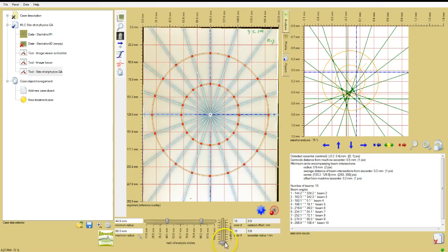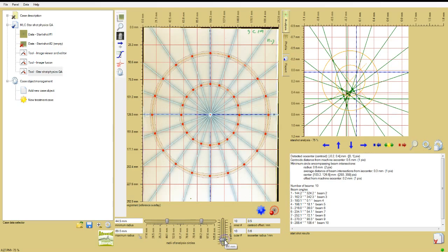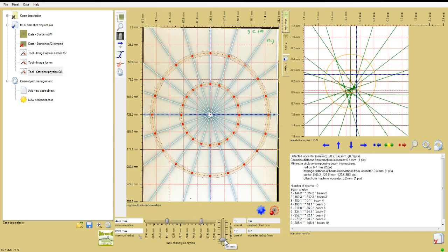That's approximately 10 to 20 pixels at scan resolution of 72 DPI. Adjust the path width with the vertical slider at the bottom of the image window. As the path width is adjusted, the value is displayed in the slider button.